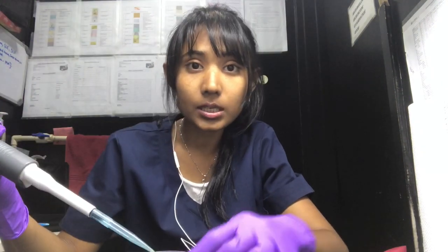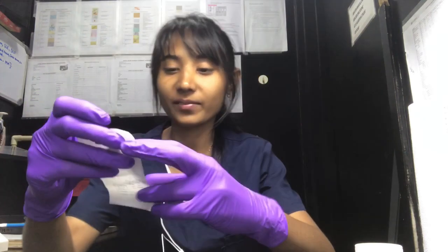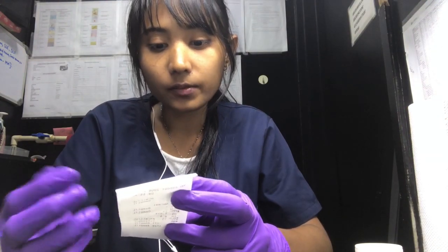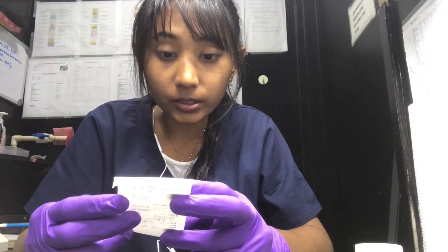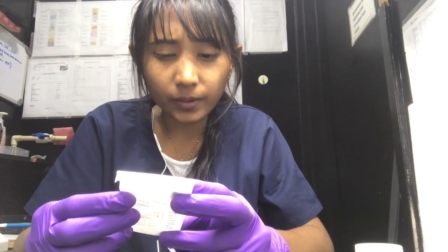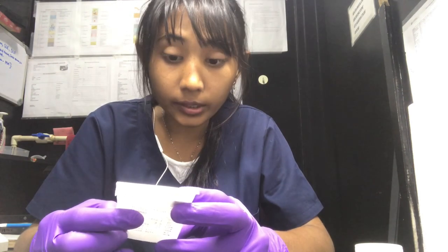Higher the viscosity, higher will be the proteins. I think our results are ready — let's see. The report is ready, and yes, I am right. The protein is 3+, which is more than 3 grams per liter. It's really really abnormal. There is blood, vitamin C is high, microalbumin is present, and creatinine is high.